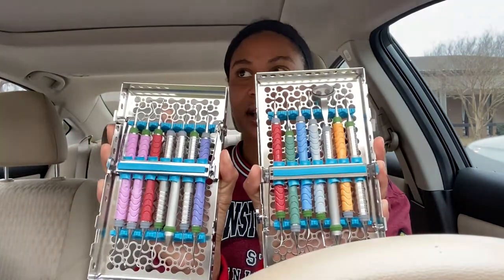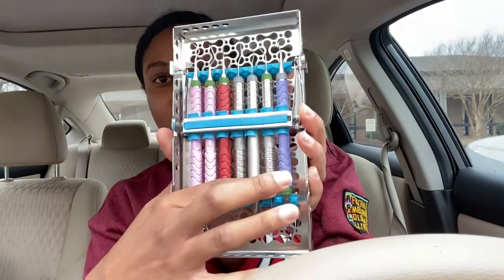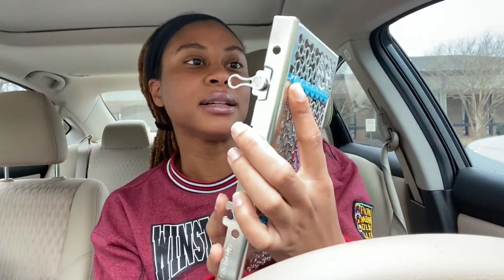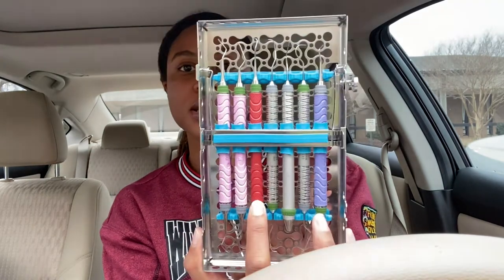This is what it looks like. I have my scalers on this side and my curettes on this side. I've been out of school for a month, so let's see if I still got this. I think this is my Nevi 4 — my anterior scaler. This looks like my pigtail explorer, my probe, my 11-12 universal explorer, and this may be my 204 SD scaler.